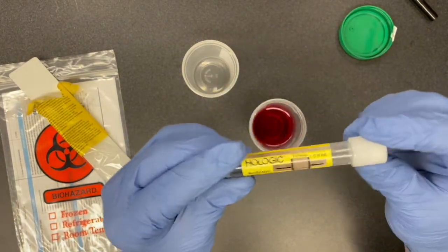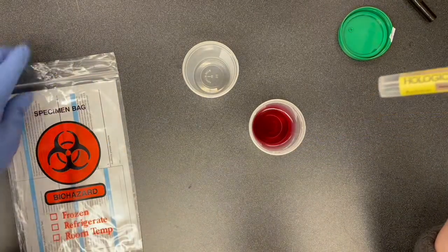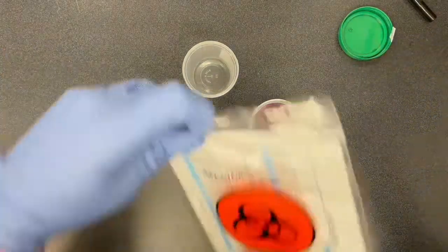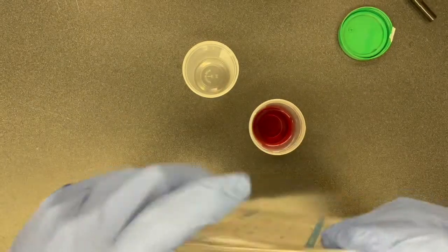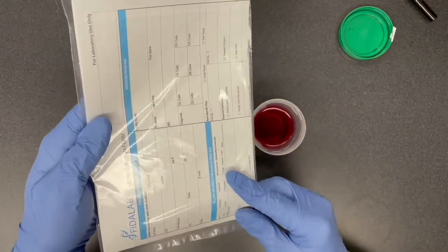Securely screw the cap back on. Place it in the provided specimen bag, seal it, and fill out the attached rec sheet.